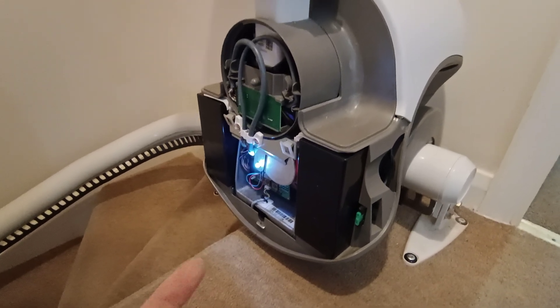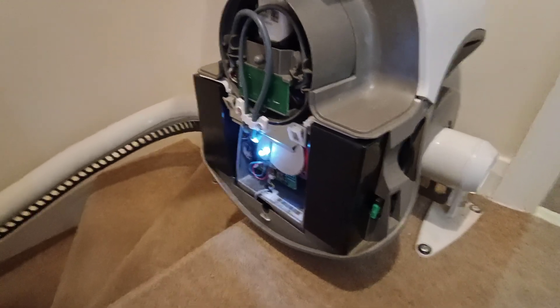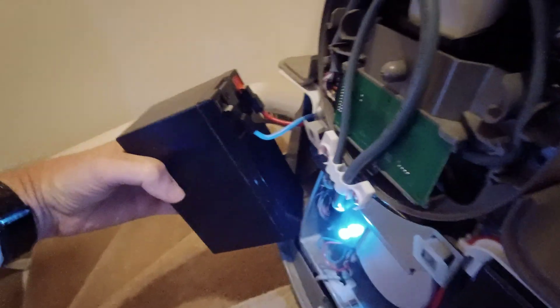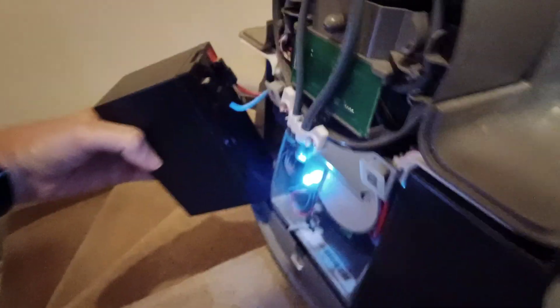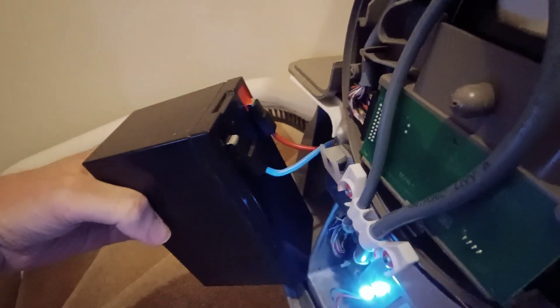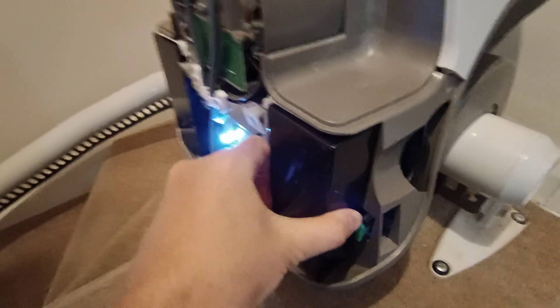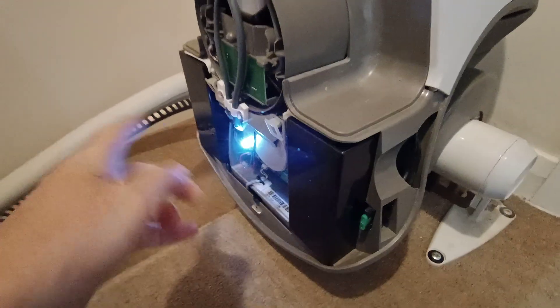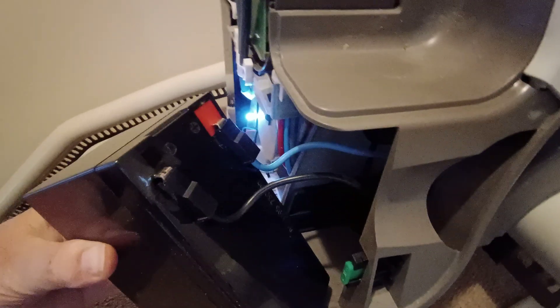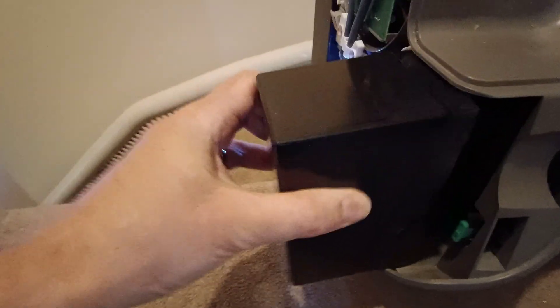In this case I thought we'd see if there's a battery problem - one of the other main failure modes would be a battery problem. It turns out you can jiggle those and they come out. When you pull them out you need to make very good record of which battery it is - the left or the right hand battery - and which way round the cables are going to it, because it's not obvious. Here in this case red goes to red, fine. But on the other side it's not like that at all. I found this side much harder to get out - you're jiggling it this way and up and down. The colour coding on the cables is different here - you've got blue going to red, which doesn't make any sense. Although the black going to black does make sense.